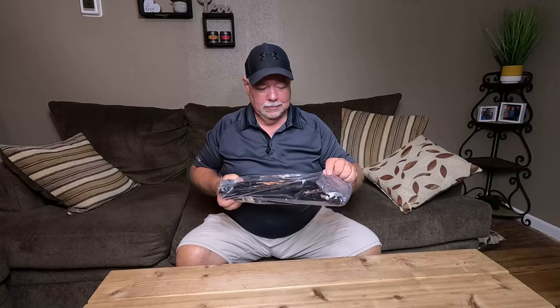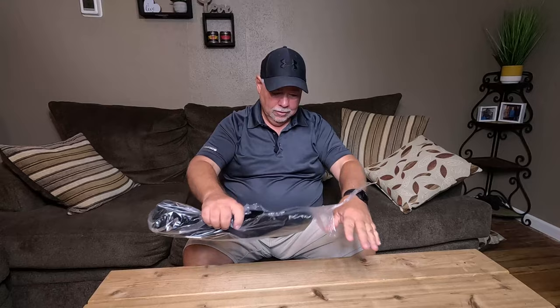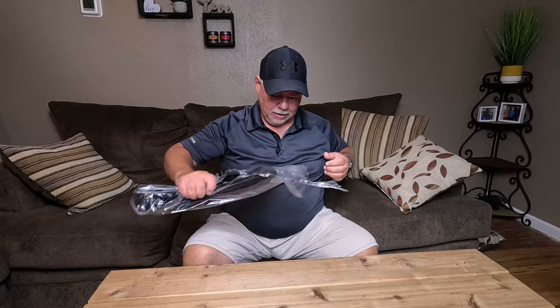Sometimes you might not be old, you just might be a little older like me, and you might hurt your leg or something and need a walking cane. Well that's where this comes in, and this one is pretty cool because it's got an LED light on it — it'll light up in front of you and in the general area. I'm going to get it opened up here and check it out.